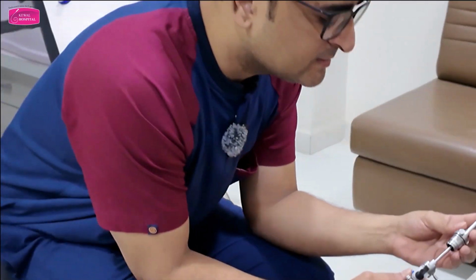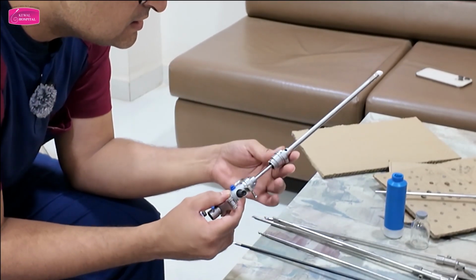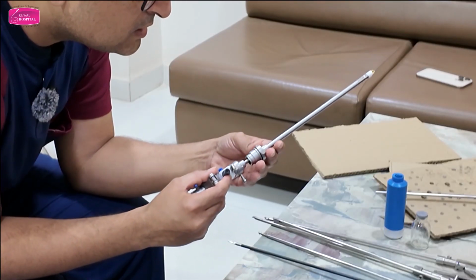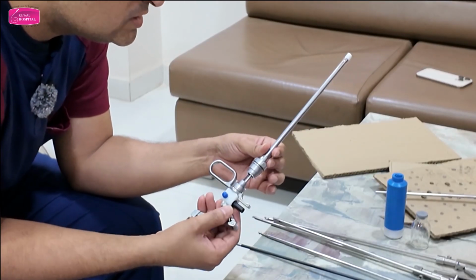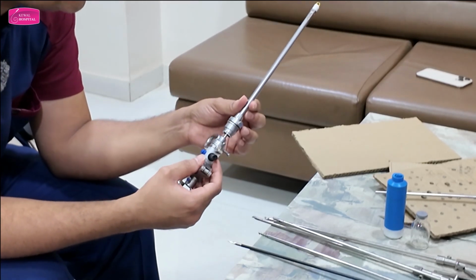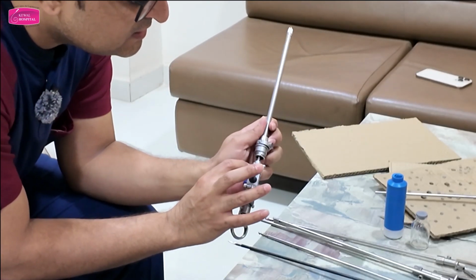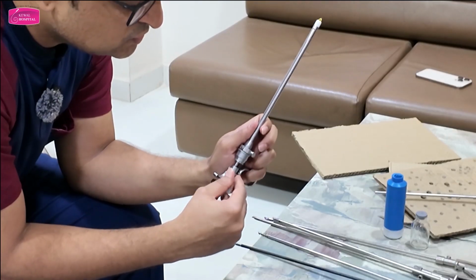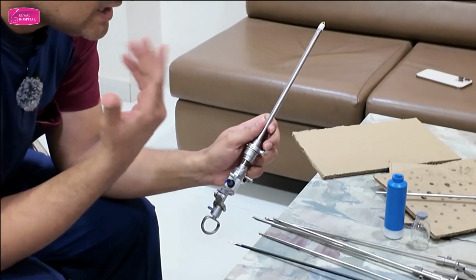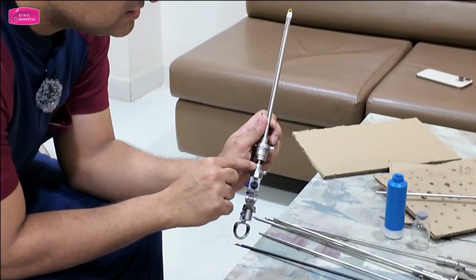go in. Now again, there are markers on every sheath. So what are the markers here? Actually, the markers are gone. This is an old sheath, I'm using it since 10 years. This was the first sheath I bought, 26 French. So see now, this is the locking mechanism. Can you see the marker here? Dot. So there will be a notch, there will be a dot, whatever it is. I am not using this sheath regularly, that's why I forgot what is there, but you can see the dots. There will be some marker on every sheath.